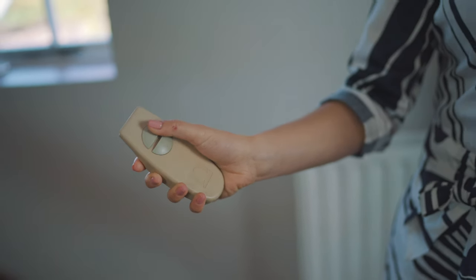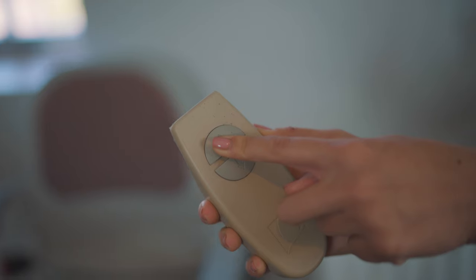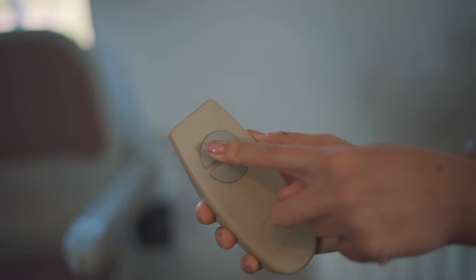This means you can keep one remote upstairs and one downstairs, so you can call the stairlift to you at any time. When you have relatives or family members over and you don't want the stairlift on display, you can just send the stairlift upstairs at the click of a button.